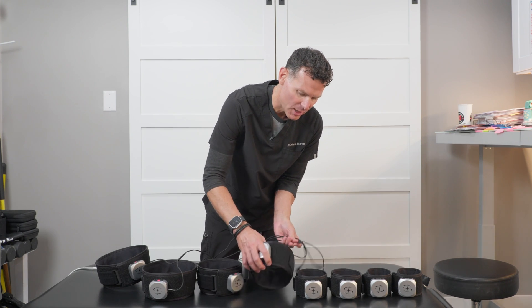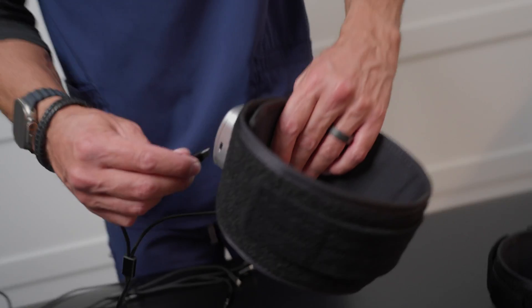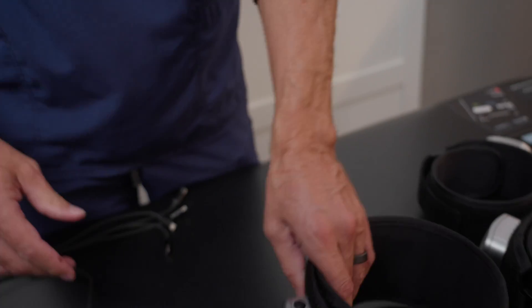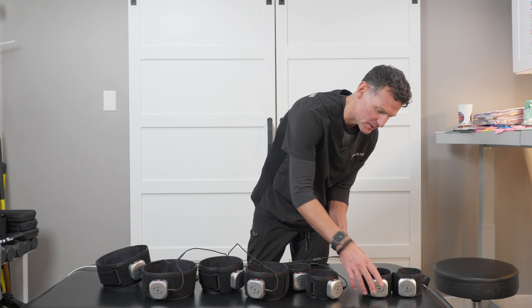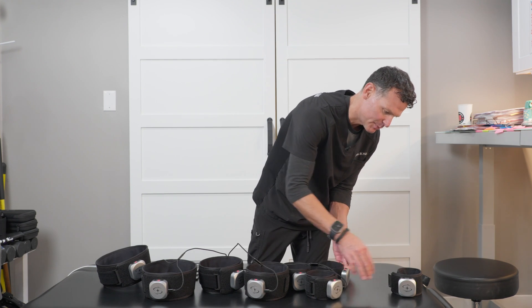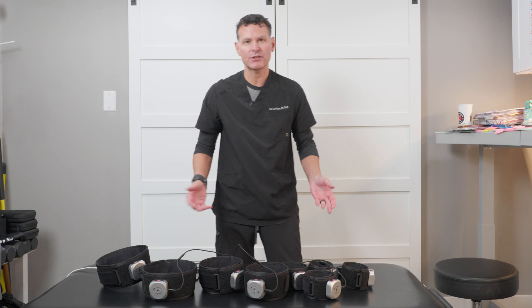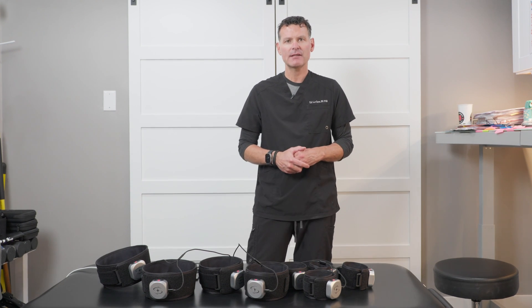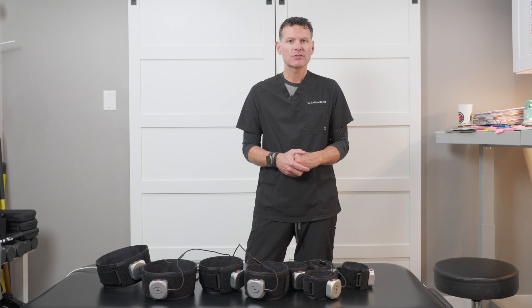These will draw energy even when they're fully off. So if they sit idle for a period of time, they will lose their battery. You can probably get about a week before it drains fully, so keep that in mind. If you sit them idle, go on vacation, come back, and they may not be charged anymore.